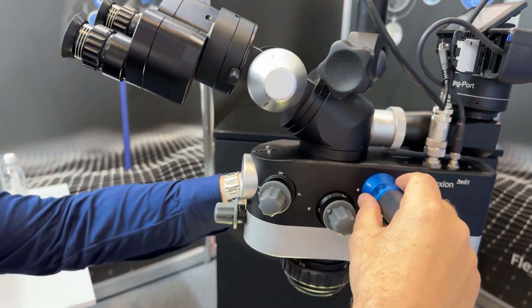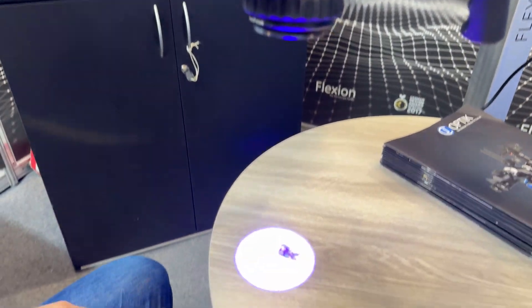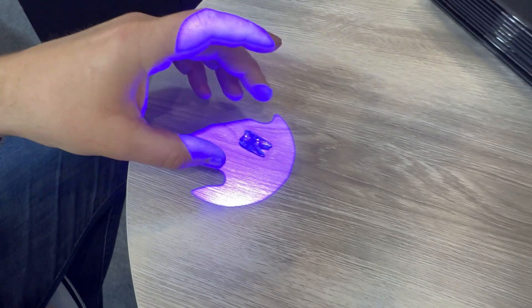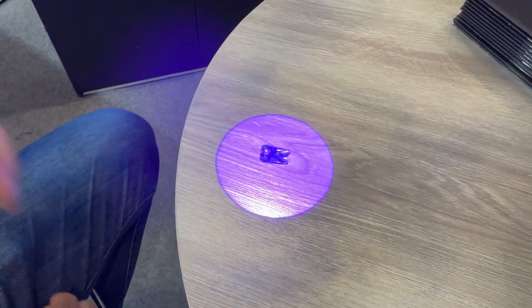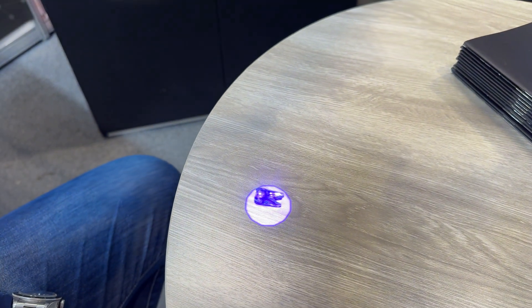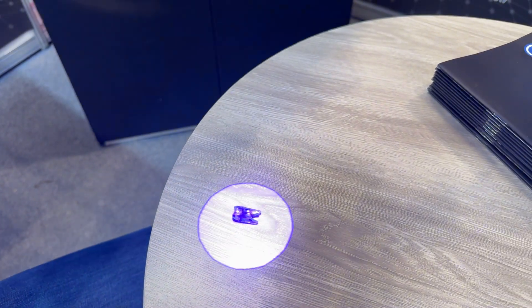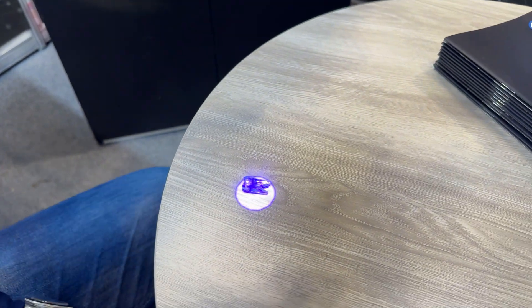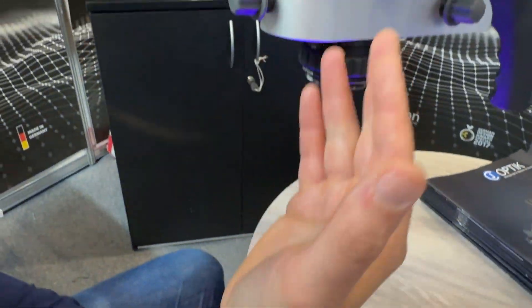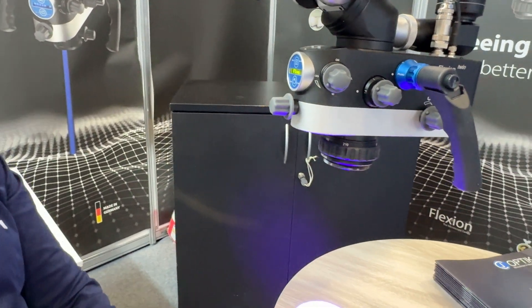On to the next part of the scope - we've got the fluorescence mode with the twin blue. Just this little toggle here will detect any tartar or caries. It's a brilliant extra tool which is either going to make your job a lot easier or give you more jobs to do. In every mode, any picture or video that you take will capture what you see here.